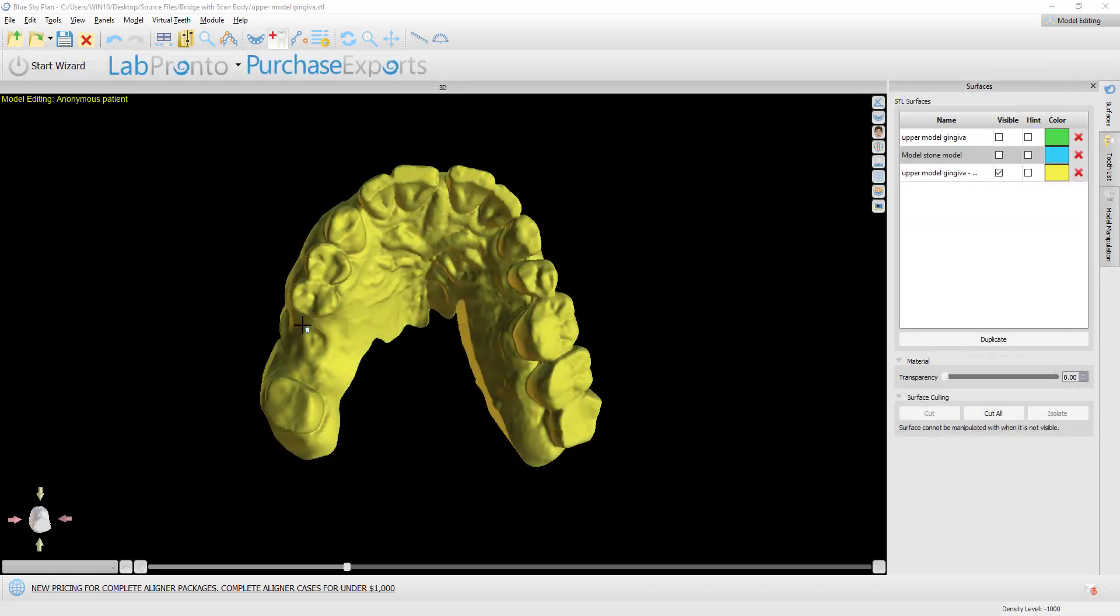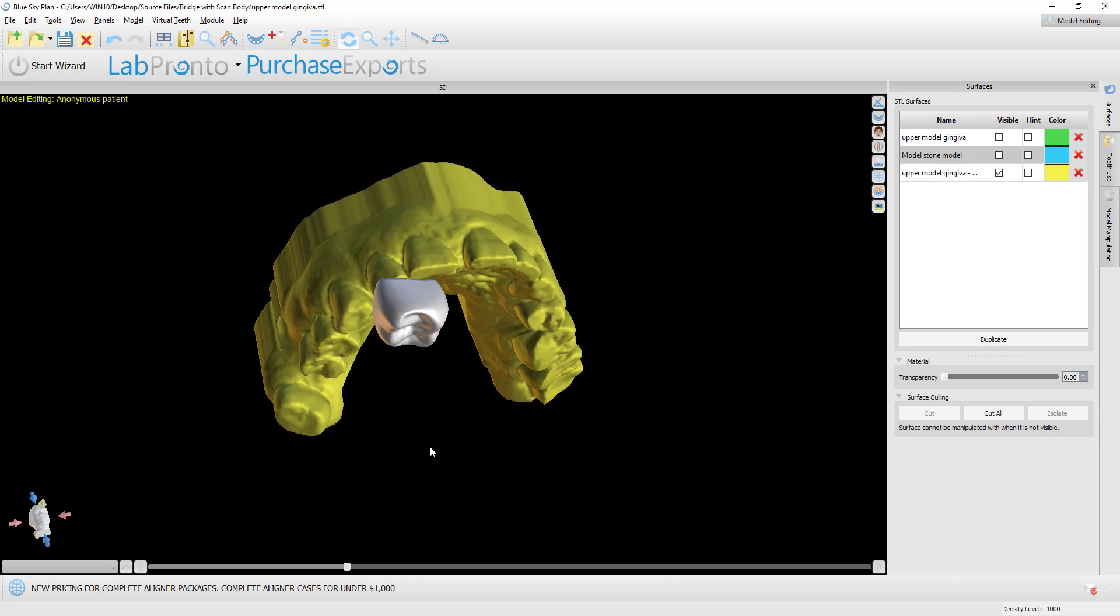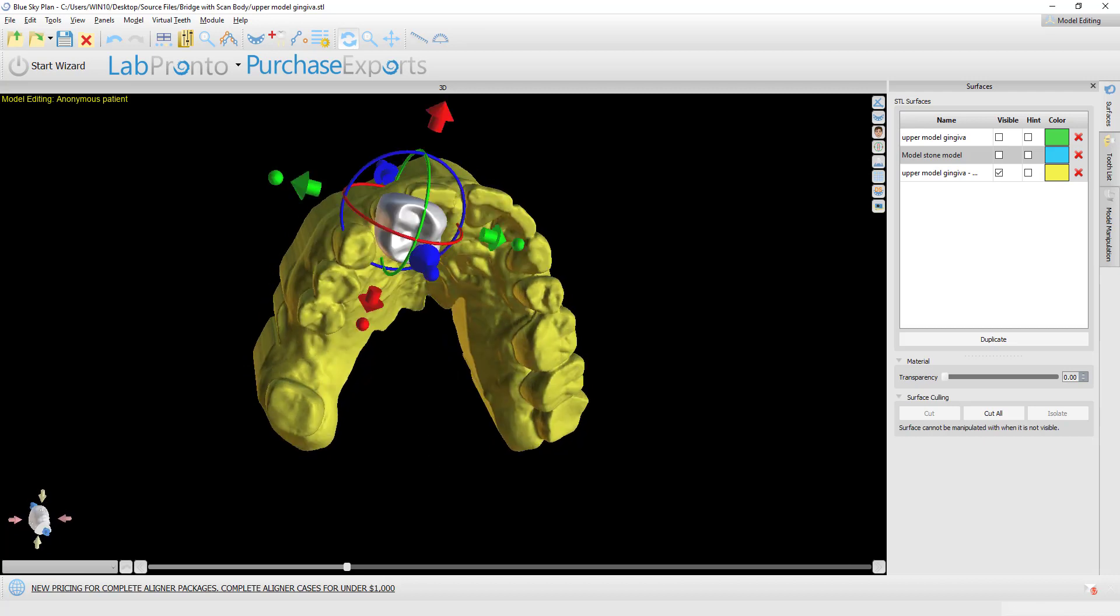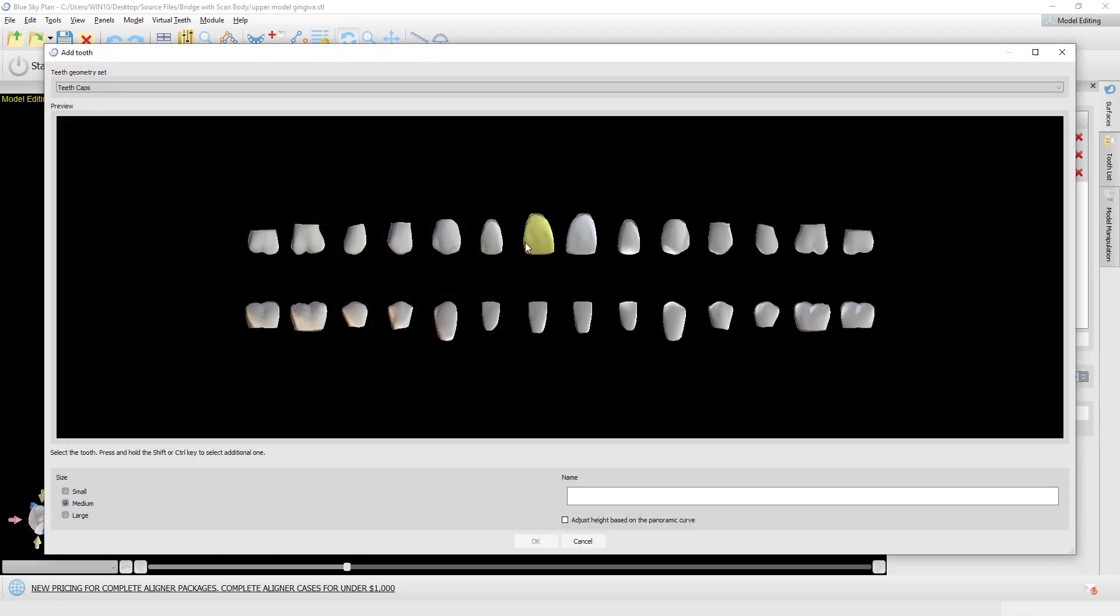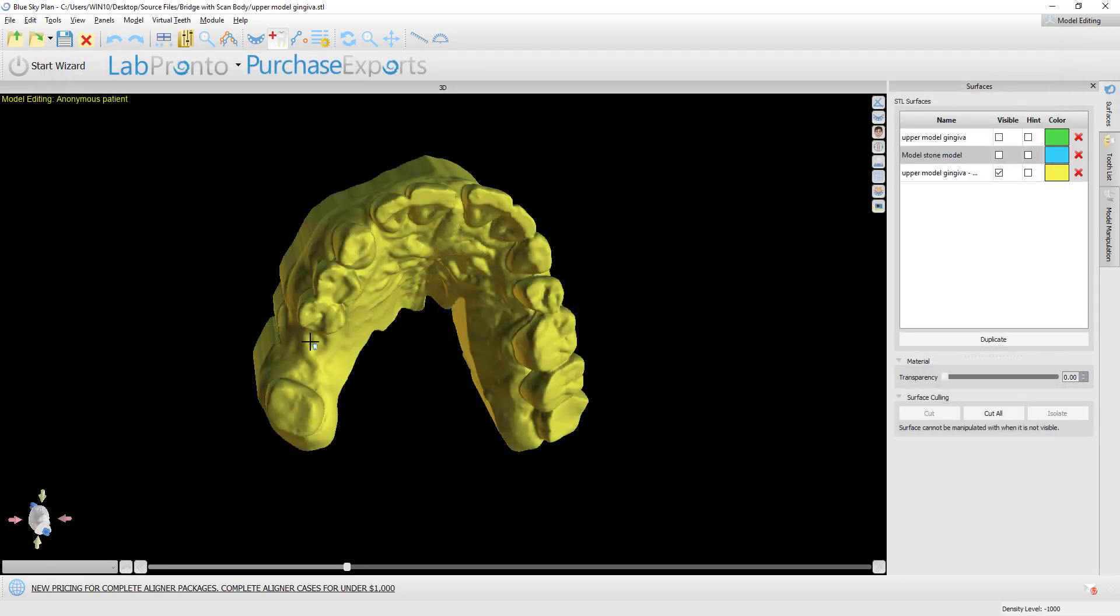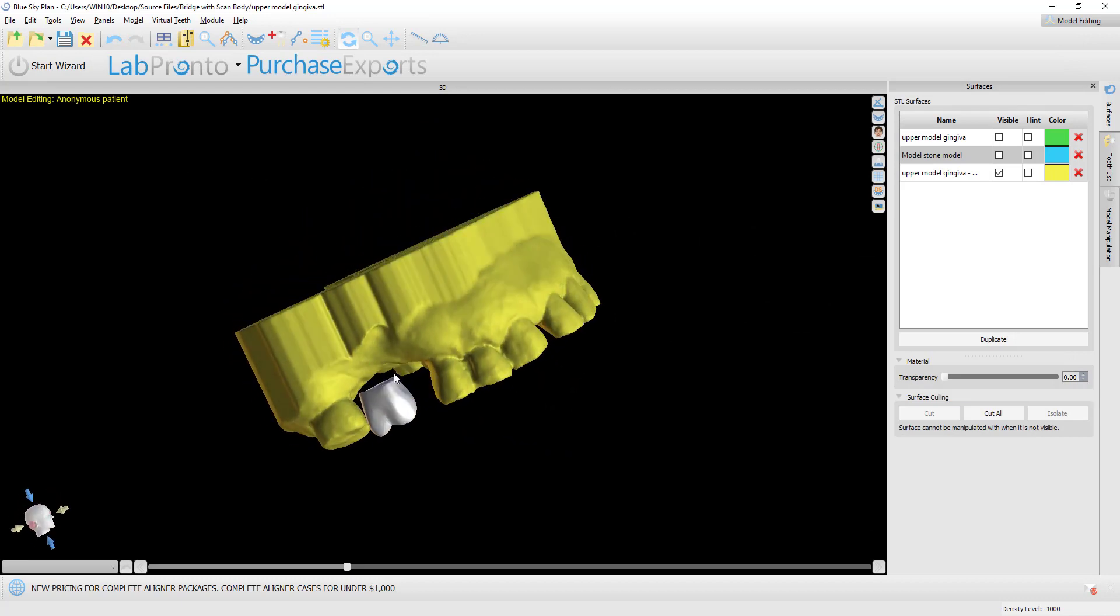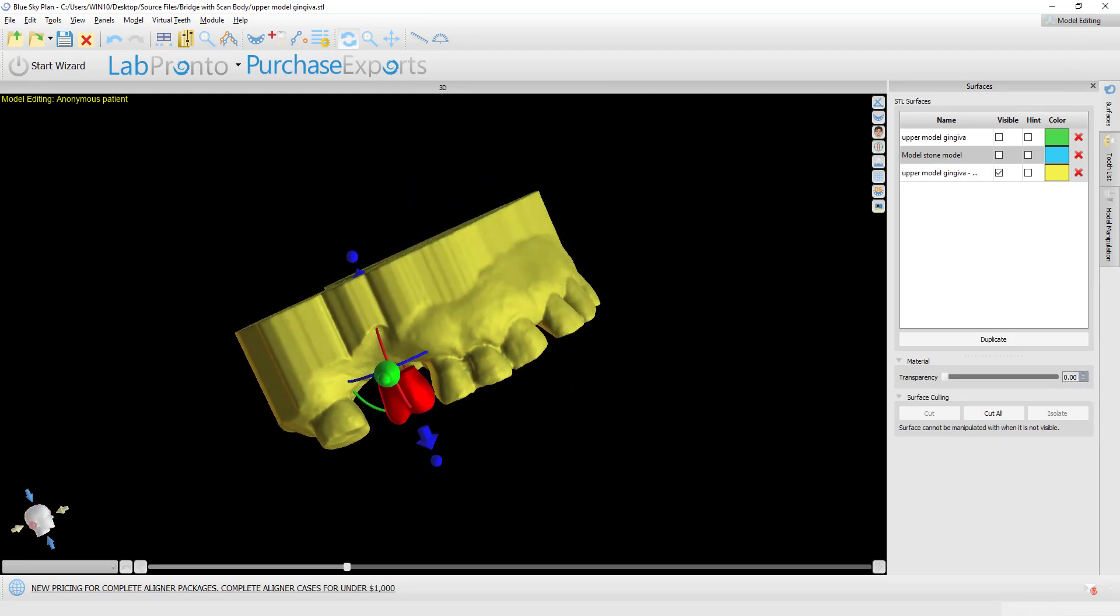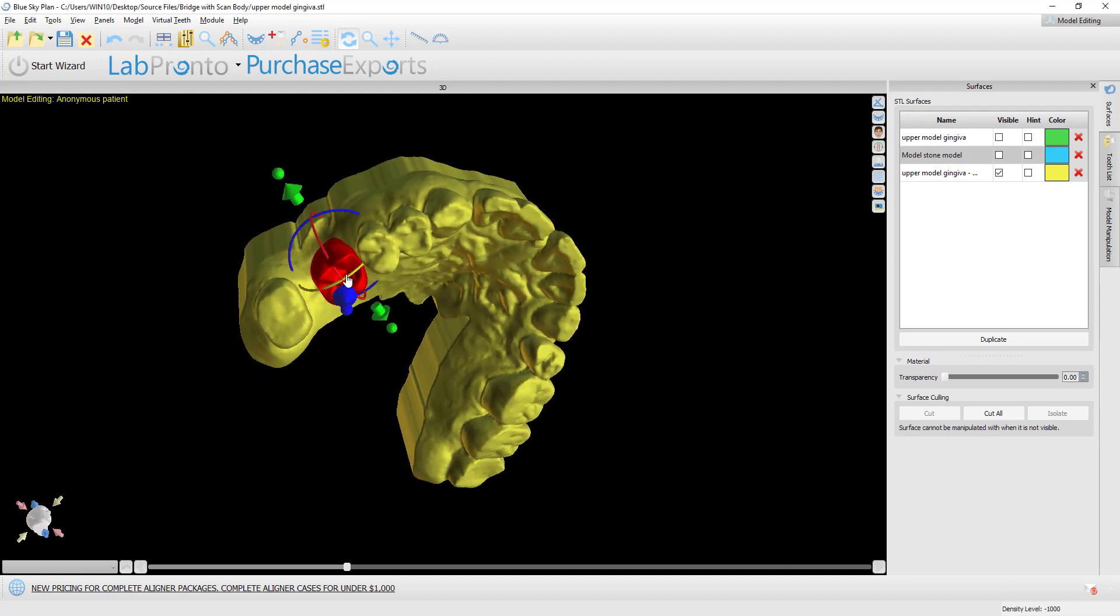I now have the cursor turned into crosshairs with a little image of a tooth we can see on the screen. I can left click to drop my tooth in. I did not mean to do that. Let's go ahead again. Left click to drop the tooth in. Here we have the case. We can grab and drag it, improve the placement using the module, rotate as needed, and resize as needed as well by grabbing the small nodes.